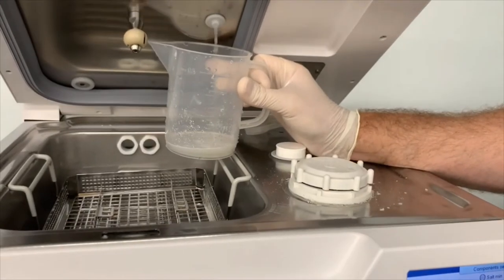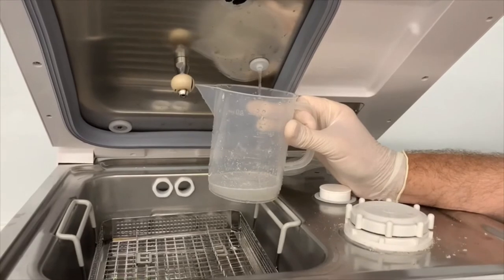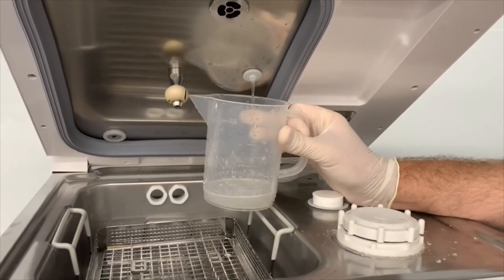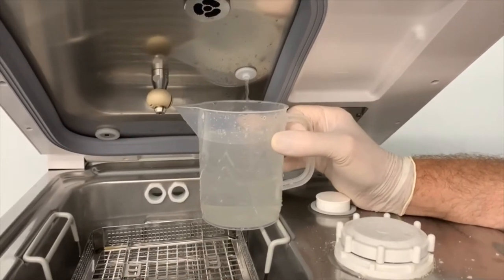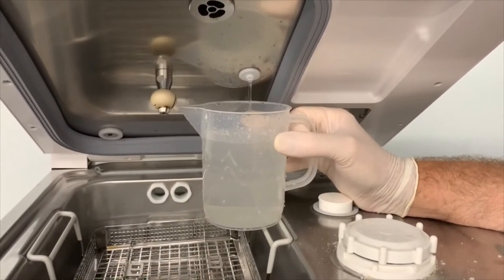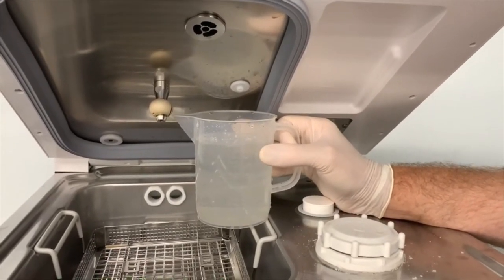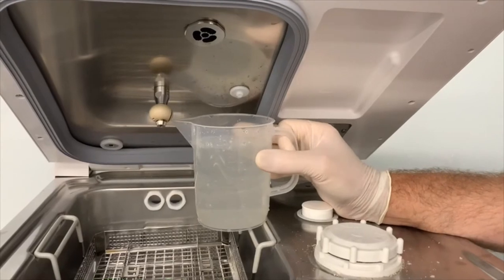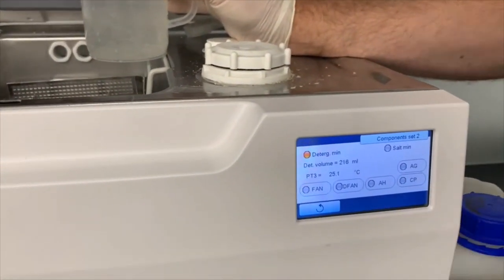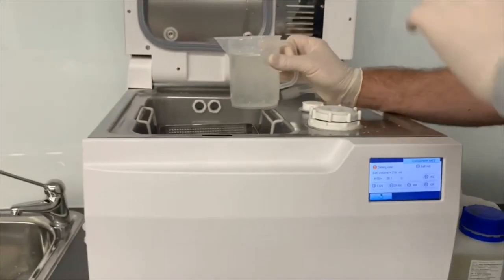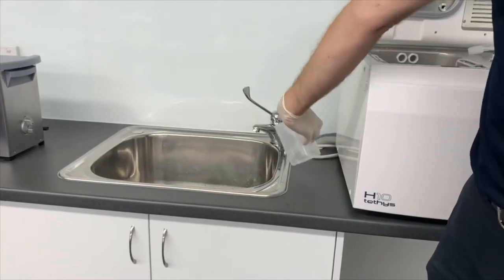And we'll just pump all of it out so that all of that residue of detergent is out and replaced with water. All right, so you can hear it starting to sound grumbly. It's sucking air now. And that'll do. So we can turn the chemical pump off. And tip that one down the drain. So that's the chemical removed and flushed out with water.